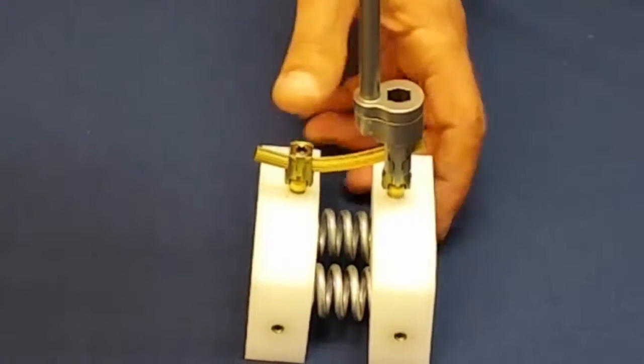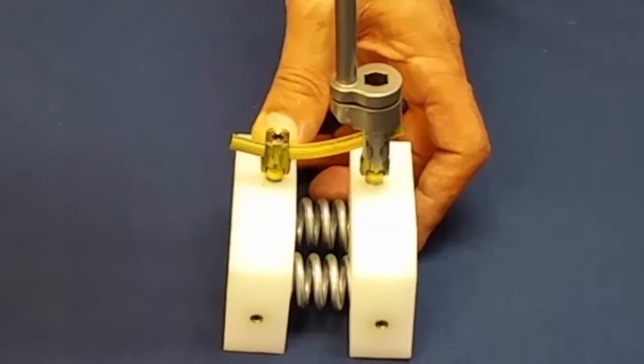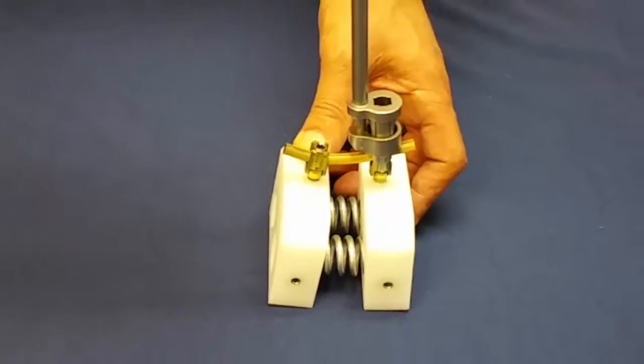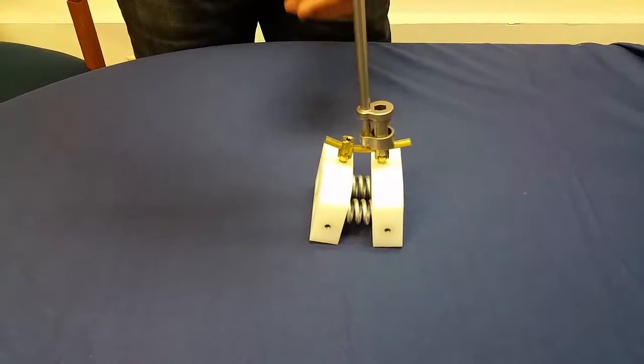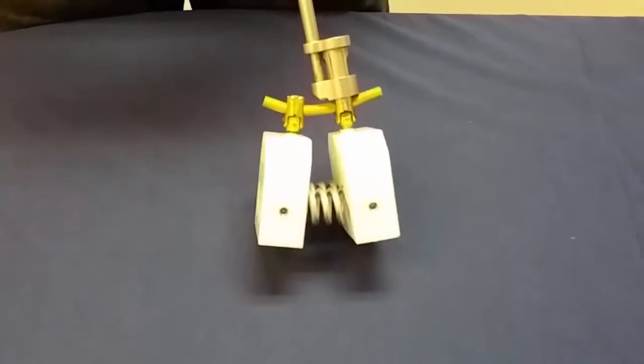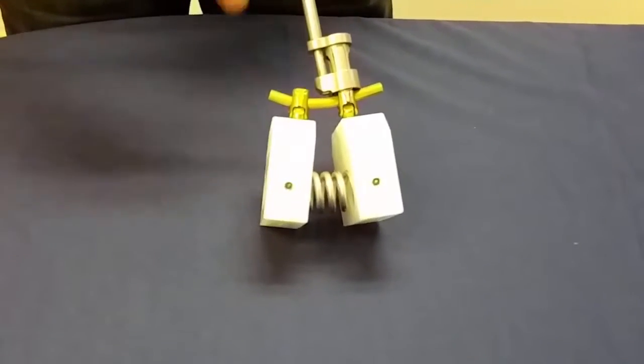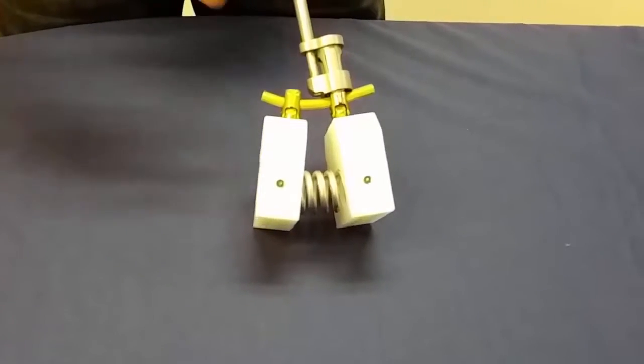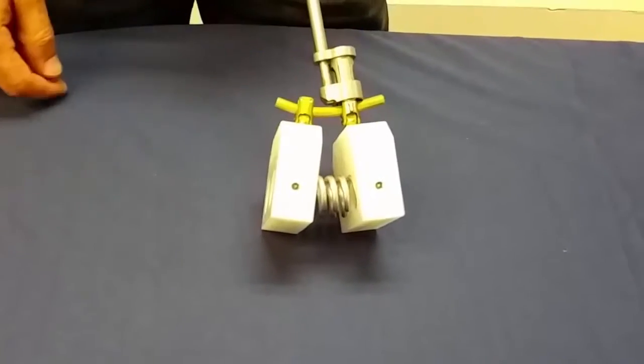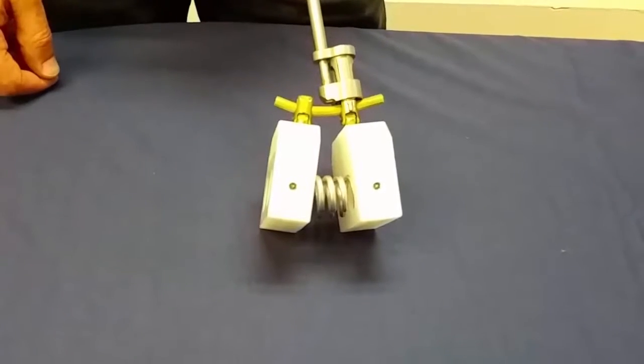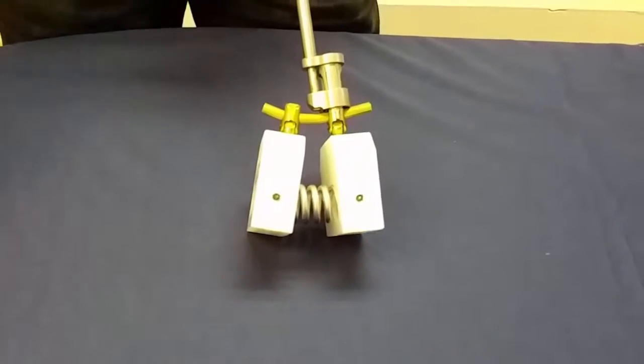Squeezing the handle will now reduce the rod on the receiver element and as you can see based on the curvature of the rod a restoration of lordosis or a change in the angle between these two blocks has been demonstrated.